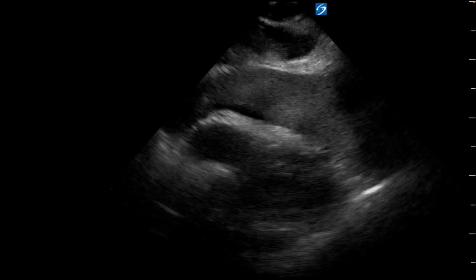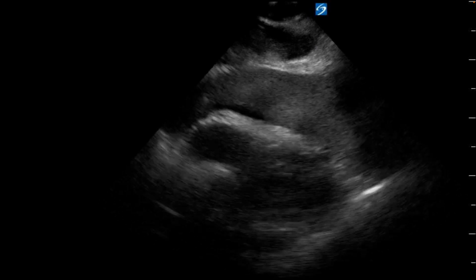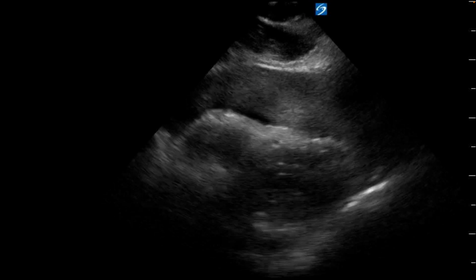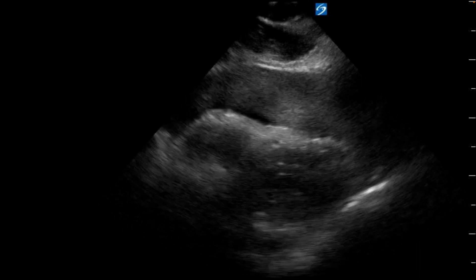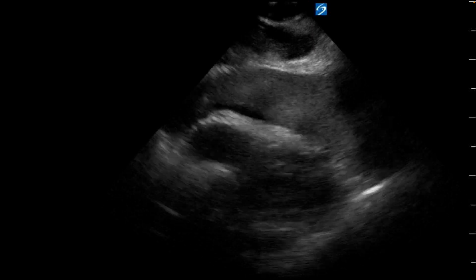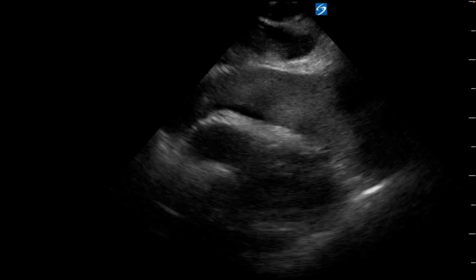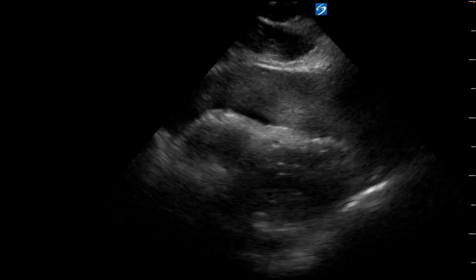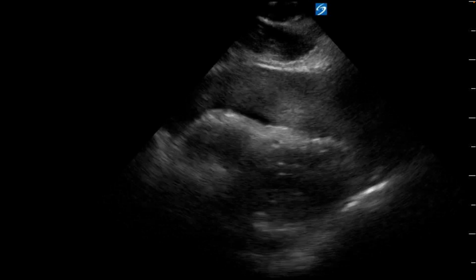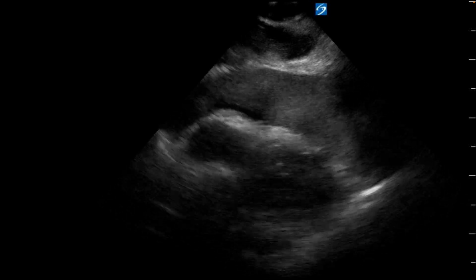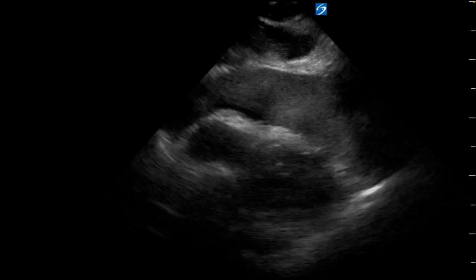During one of the pulse checks, an ultrasound was performed to evaluate what the heart was doing. It's a little unclear if the diagnosis was made off of this clip or if they saw subsequent images, but in the documentation they documented that there was no cardiac activity. I wanted to work you through what may have been possible to do. I'm not sure it would change mortality, but I do think it's important when we do ultrasound to understand what we're seeing and work from there.